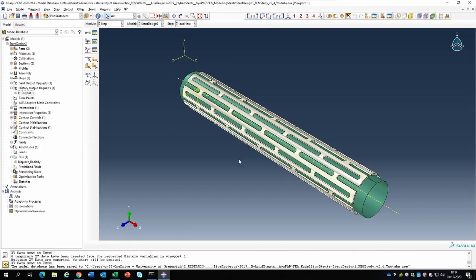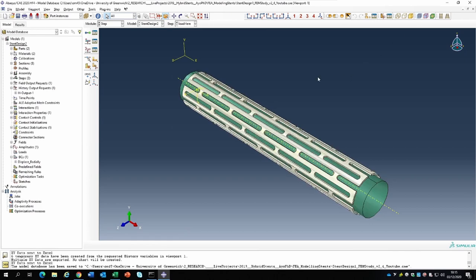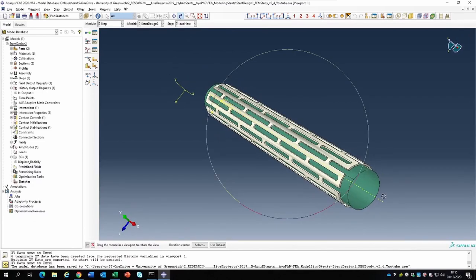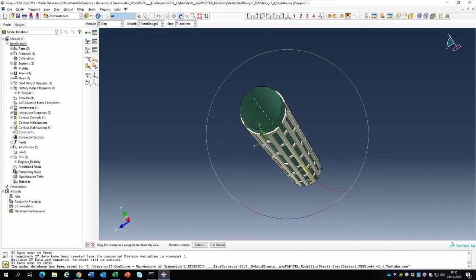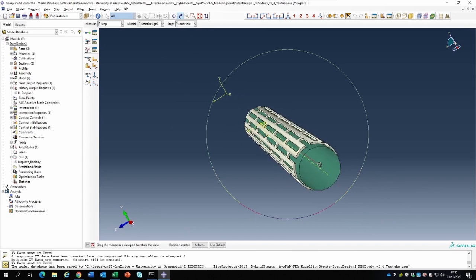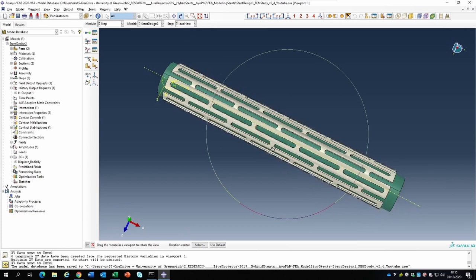Here we are on my desktop containing Abaqus. I'm no longer using the student version - this is a full version I have access to. This is our stent model and the green part is the balloon. The balloon is going to expand and blow up the stent so that the coronary angioplasty procedure could be completed.